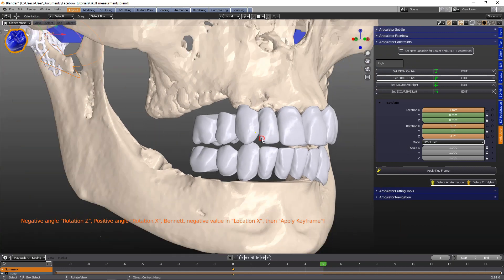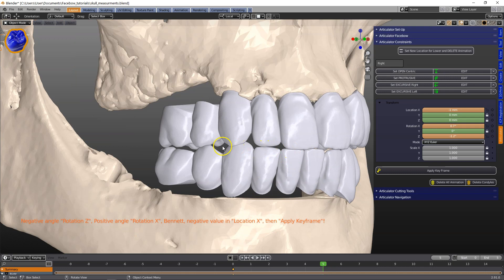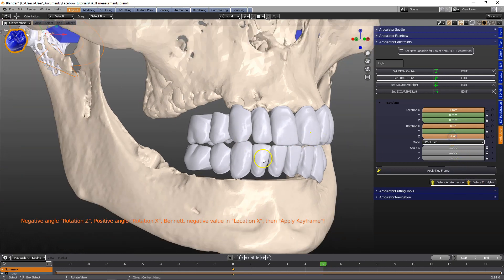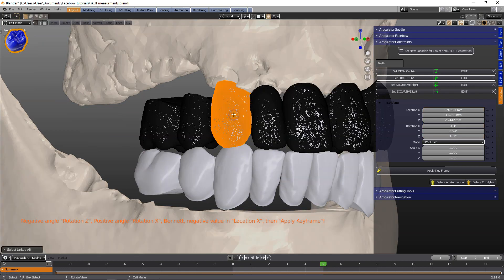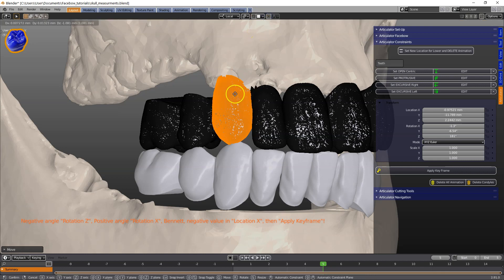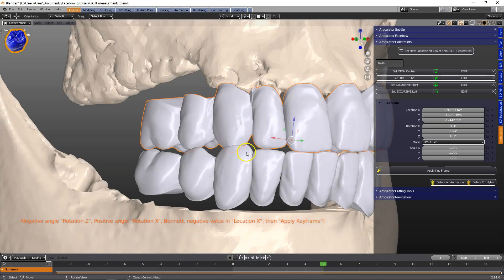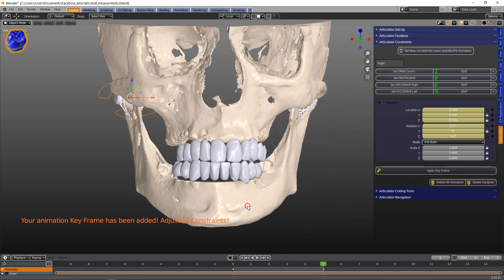These are teeth from a tooth library, so you can see the interference. We could cut these with the articulator if we wanted to, or we could go into edit mode. If we are setting up teeth for a denture, for example, we can move the teeth accordingly — it's exactly what we do in the lab when working with dentures. We just reset the teeth.